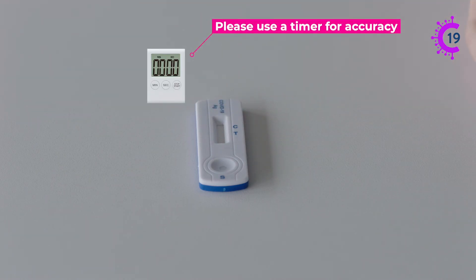It will take 15 minutes for the result to be ready and the results should not be read after 20 minutes as they may not be accurate.